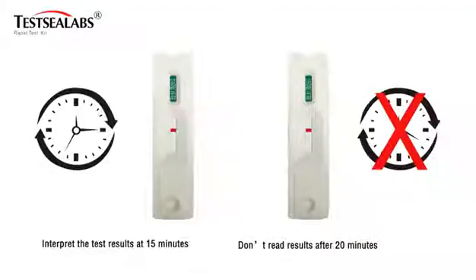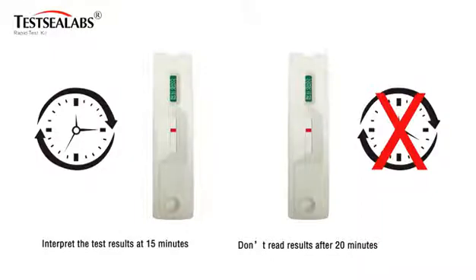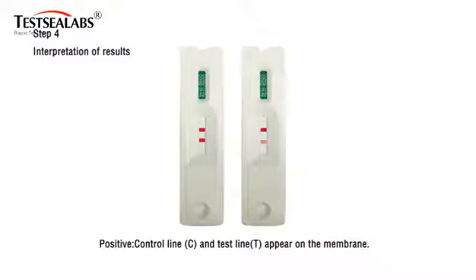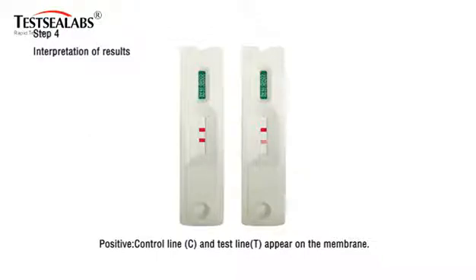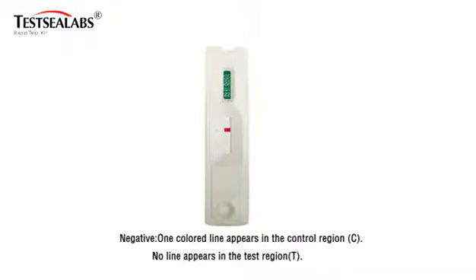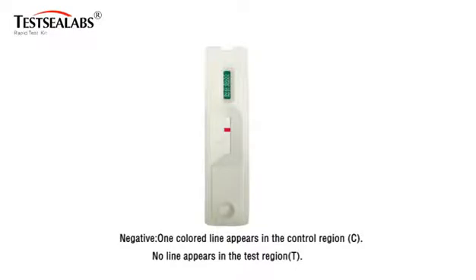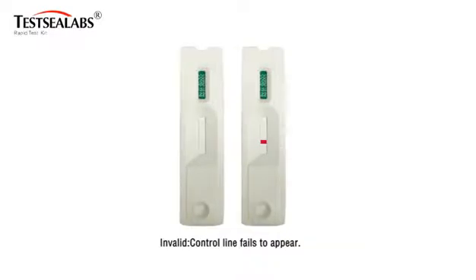Interpret the test results at 15 minutes. Don't read results after 20 minutes. Positive: control line C and test line T appear on the membrane. Negative: one colored line appears in the control region C, no line appears in the test region T. Invalid: control line fails to appear.